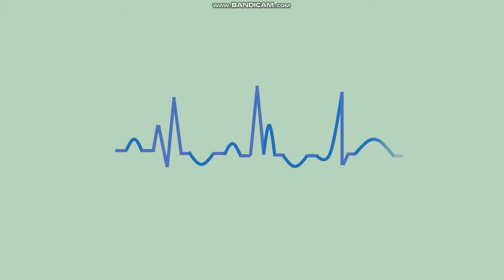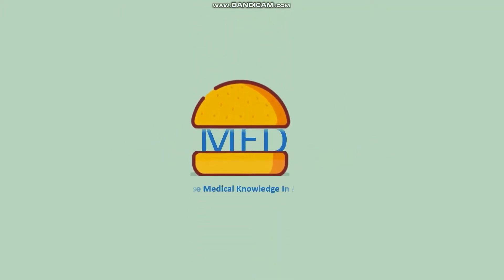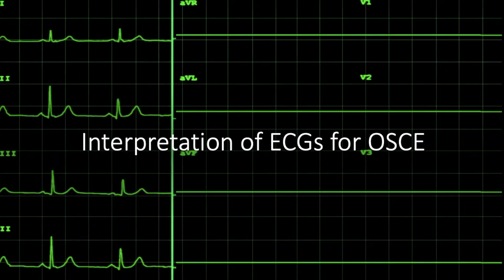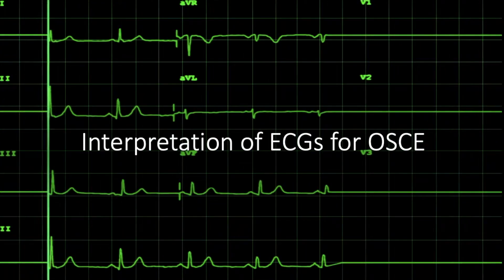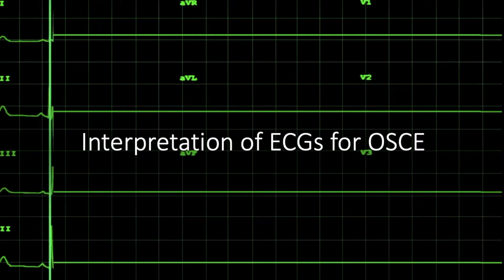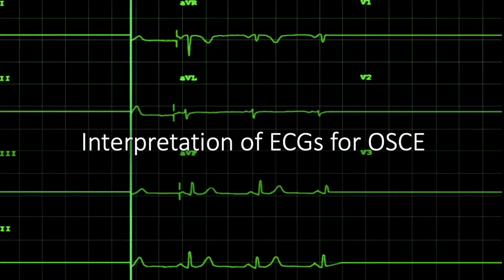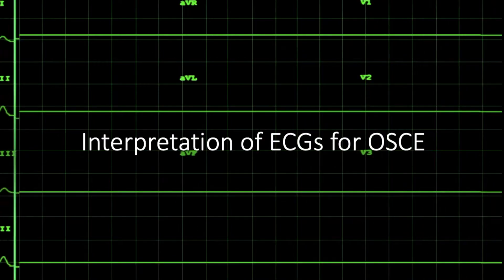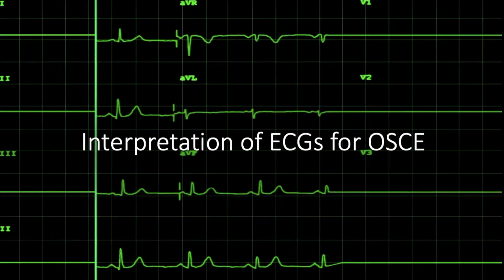Hello everyone, welcome to another video from BunMed where we discuss concise medical knowledge you can fit inside of a bun. This is the last part of a four-part series on interpretation of ECGs. In this video we will look at the ST and T wave changes and how these correspond to ischemia of the heart.